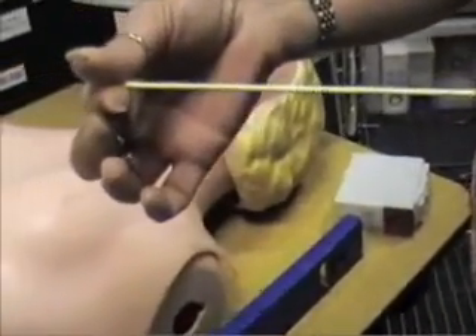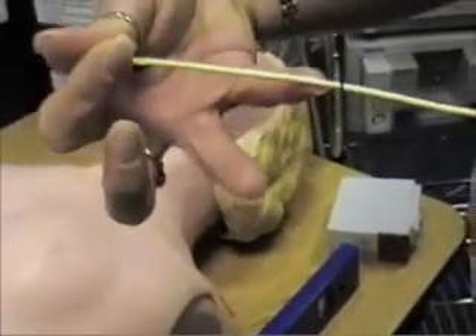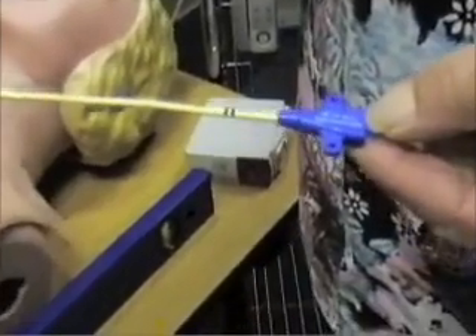What are those markings on there, Kristen? Each of those marks denotes 10 centimeters, so you would have 10 for a single mark, and when you have two, it's 20.